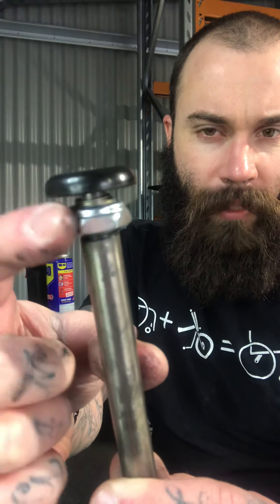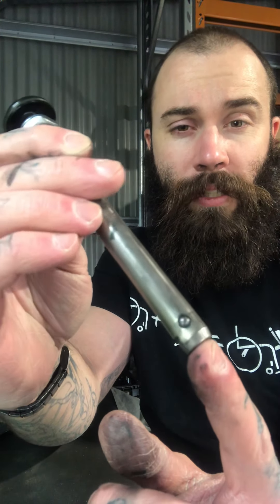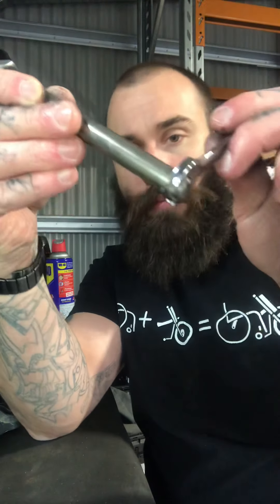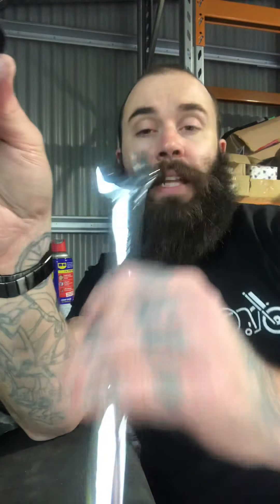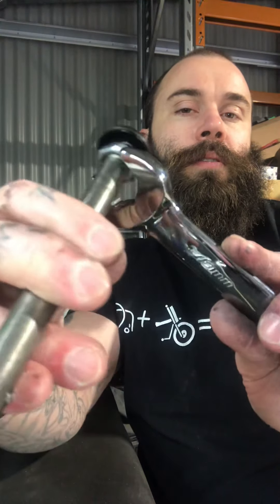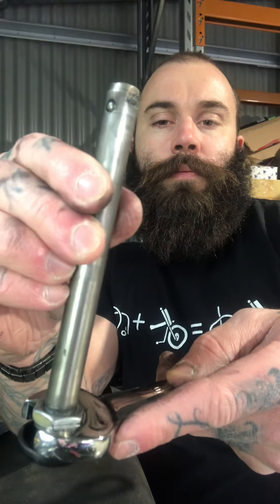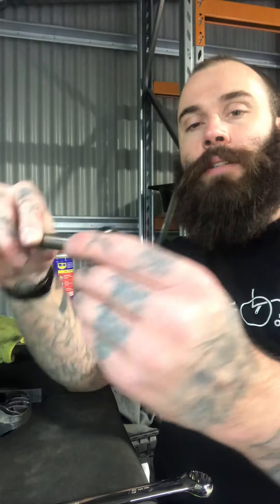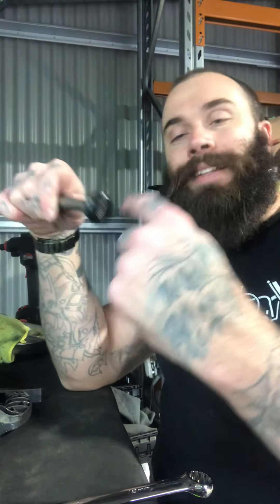So you've got a nut up here. And as you can see, below the nut you've basically got some threads. Yeah, behind the nut you've got a whole bunch of threads there basically. And this little flat section just here down the bottom of the axle — that's ideal for getting your spanner on. What you want to do is you're going to get an 11 mil. The 11 mil locks into the bottom there — locks in nice. And then basically an 11 mil for the bottom and a 19 mil big one for the top. And that basically locks into the top like that.